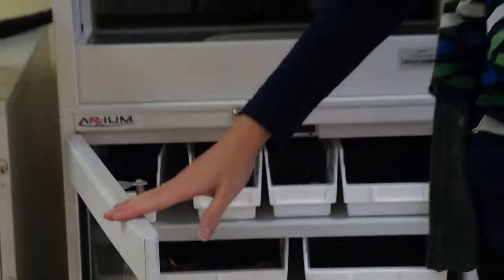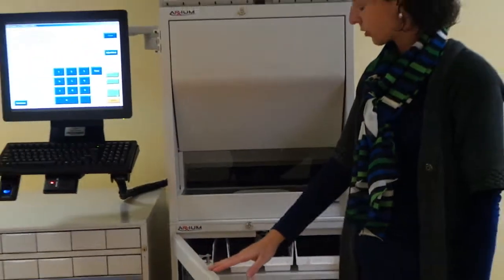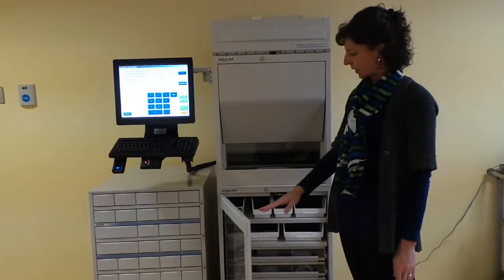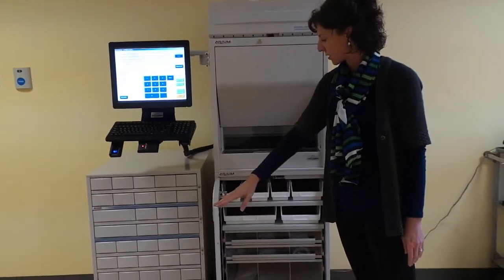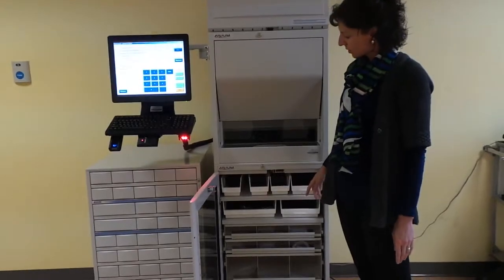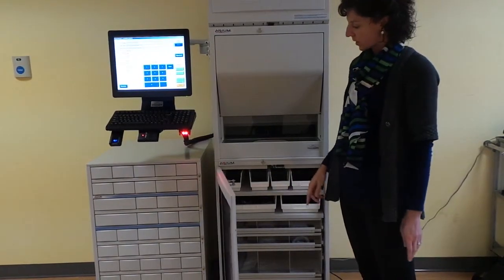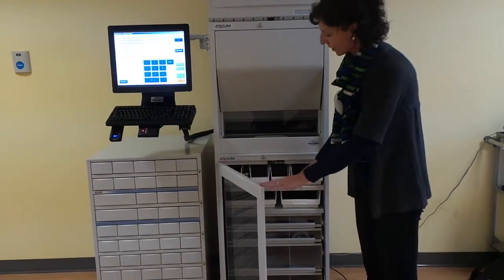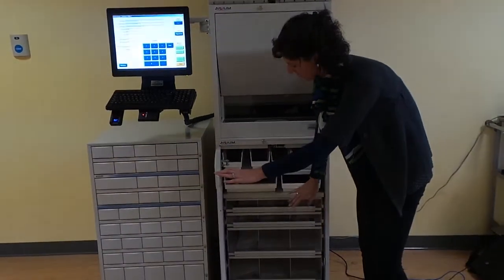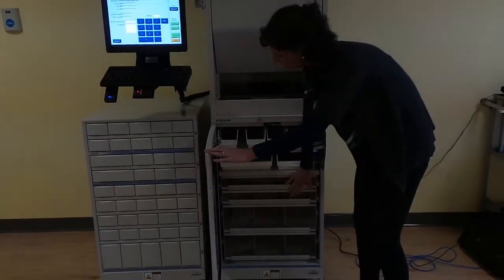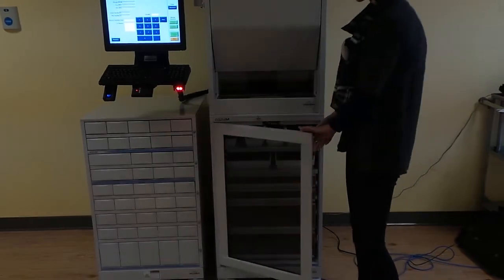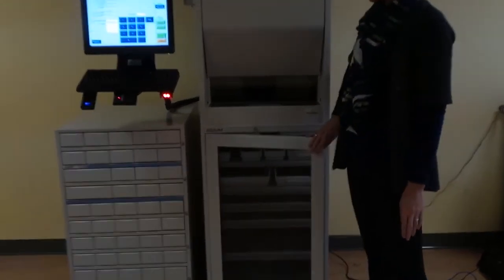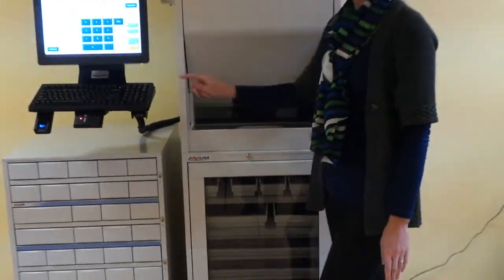Again, just as with the matrix drawers, a prompt will appear on the screen to tell you the location of the medication that you are trying to dispense. All of the medications in the top row will be labeled as the 100 series, and then subsequently 200 series in the second row, 300s, 400s, 500s, and 600s. When you are done dispensing your medication, you simply close the door.